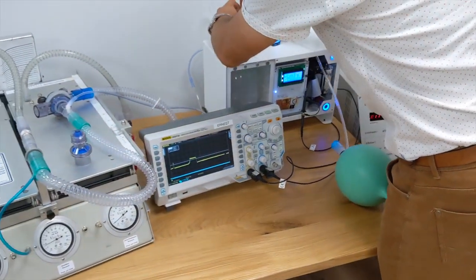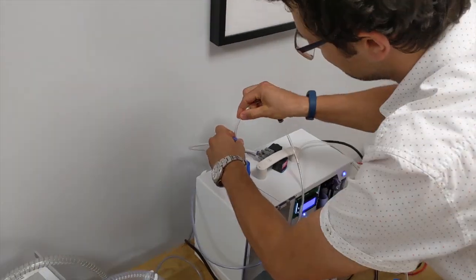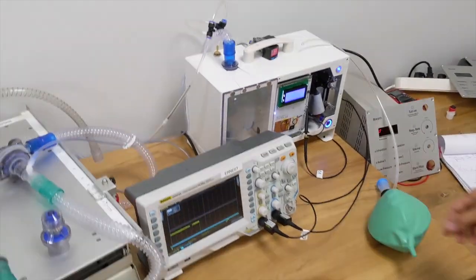Now I'm going to change the setup. I'm connecting the hose directly from the circuit. So now we have the value that is in the circuit.